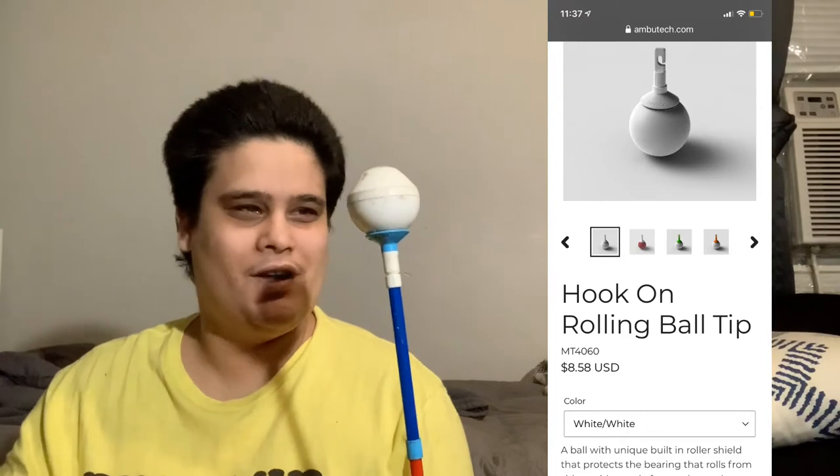As much as you can love the thing that rolls around on the floor — it is an actual ball. This is a used one; when it starts to blow out like that it means you have to replace it, because it'll get stuck in cracks even more. I actually have a friend whose cane tip wore all the way down, and we found out there was a metal piece inside. I don't know what it's made of, but I'm assuming it's some type of nylon material — if anyone knows, you can comment down below.